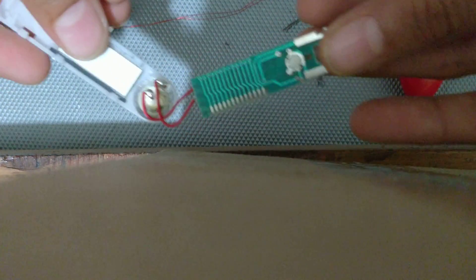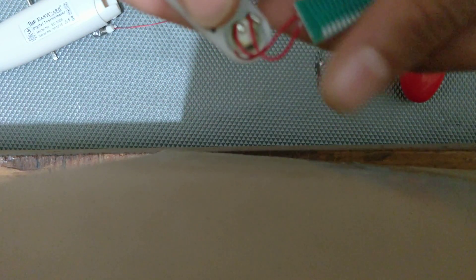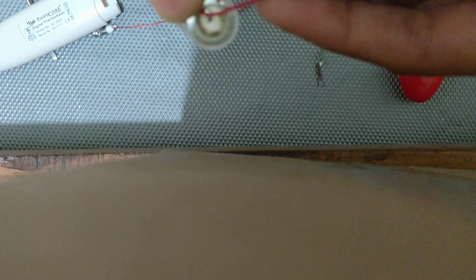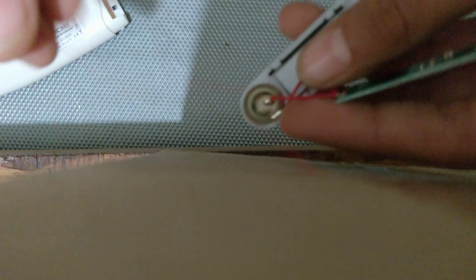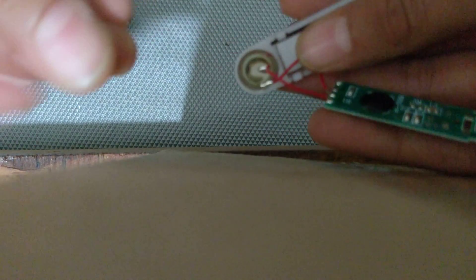If I used to see, there is no single connection from the display with the IC. Actually this is the temperature reader, and it's connecting. I think what I have observed is, I don't know exactly, but what I have observed is this sensor or whatever would be connecting to this.